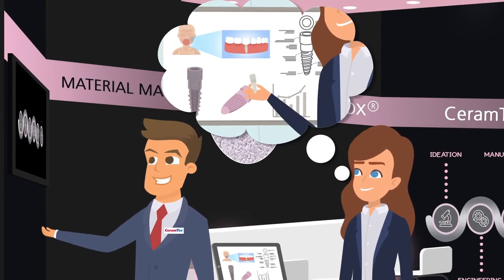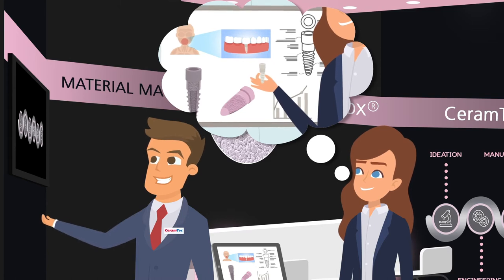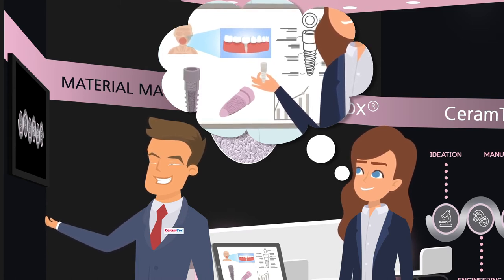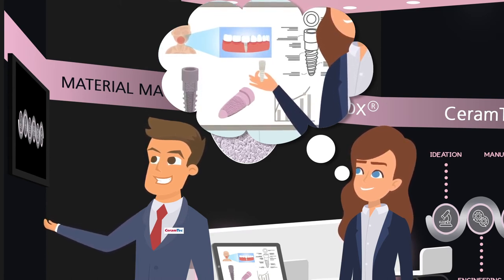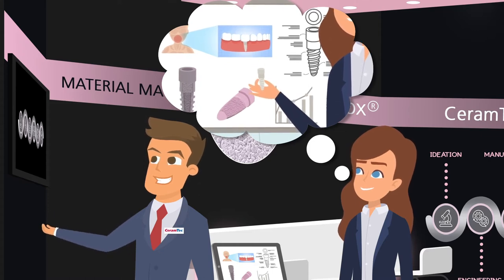A feasibility project is a low-risk way to start. She can get her new Zirconia prototypes within a few months and evaluate CeramTec's performance before proceeding.